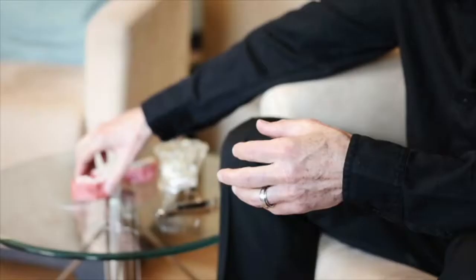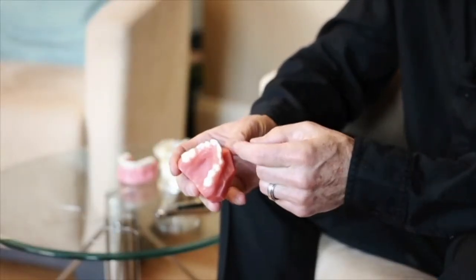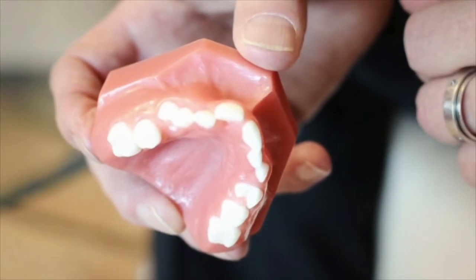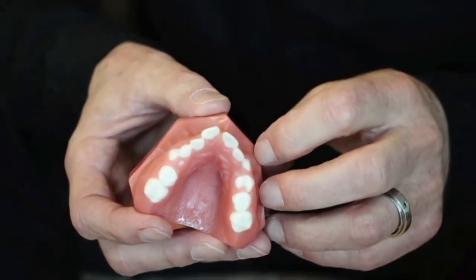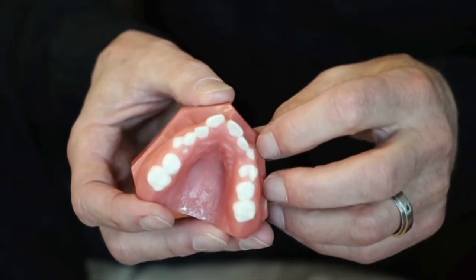In this particular case we see this maxillary right lateral incisor which is lingual to everything else. It's very easy to tip that tooth forward and bring that crown out so it looks nice and straight, but if we don't bring that root along — labial root torque — as soon as we take the appliances off, within a few weeks that tooth is going to start to jump back. This is a perfect example of where you use the spring, because these are the things that you see happen once you finish your cases.